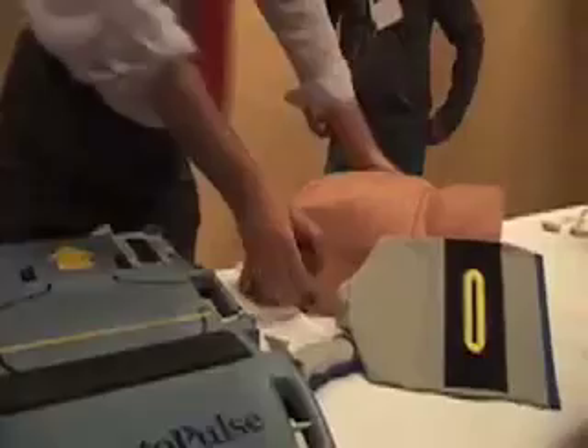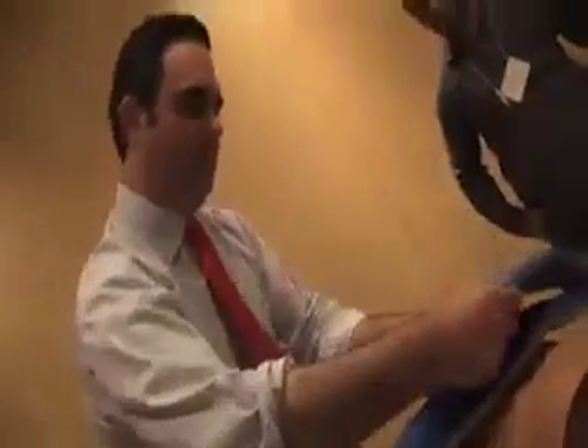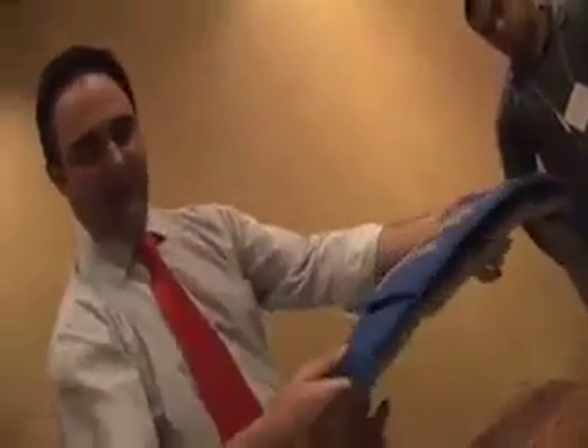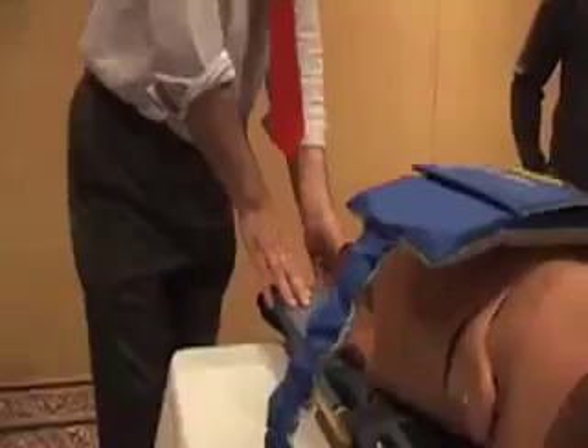That's just good CPR. You've got the life band in two pieces that goes over the patient. That's the size patient — we've got a bigger band coming. The display on this side is very simple. You've got a stop and a go.